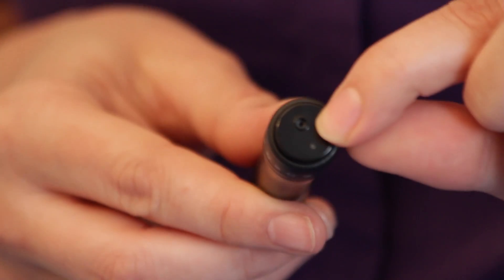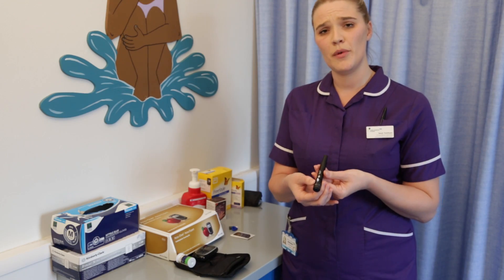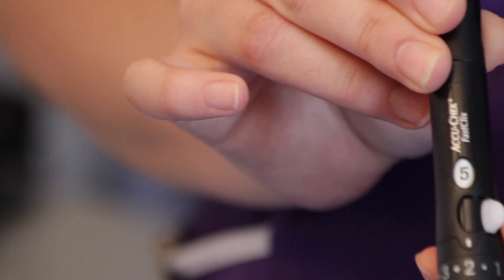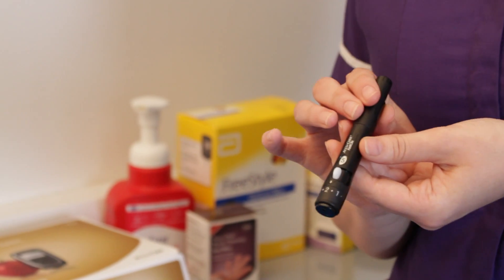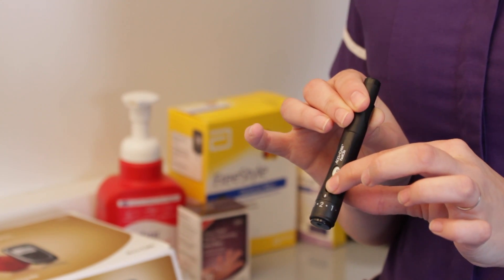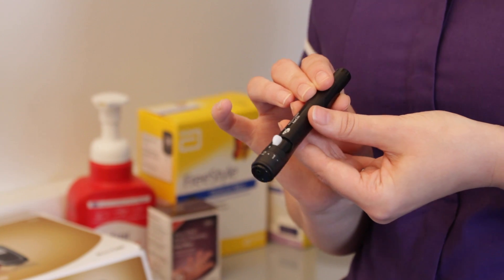There is a hole at the bottom and that is where your needle comes out from. To advance your needle, simply move this white part across and back again and you will see that the needle will go down. Once you have used your last needle, it is physically impossible to move this white part across, and that's your indication that it's time to change the barrel.